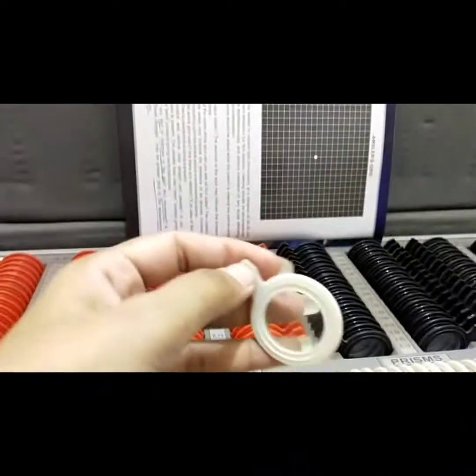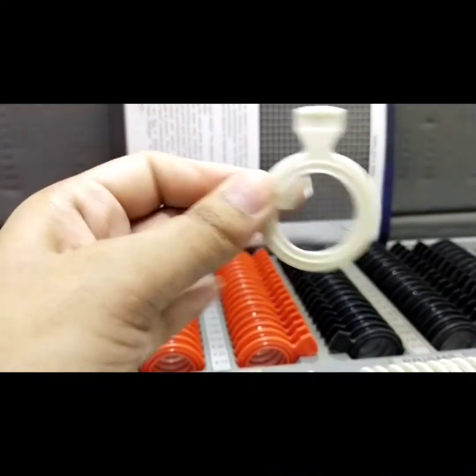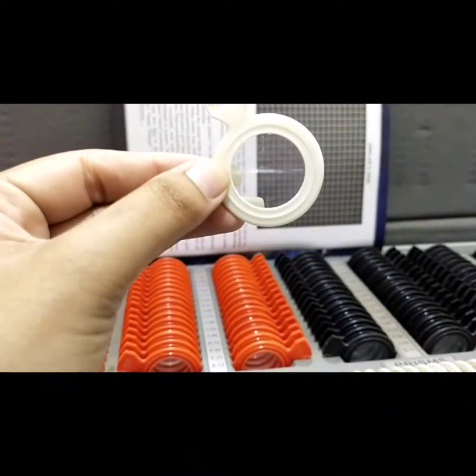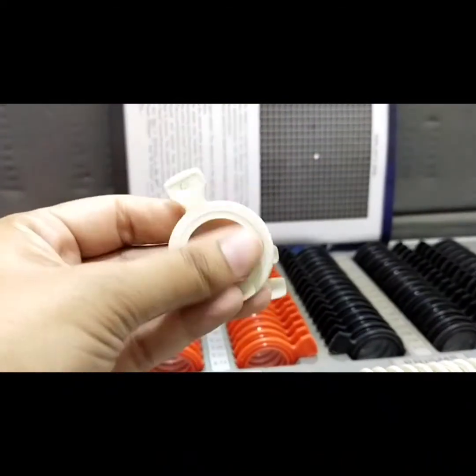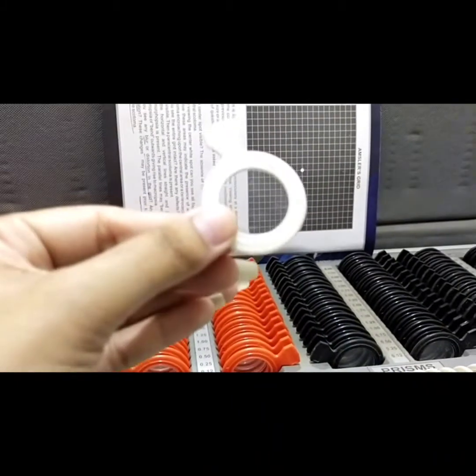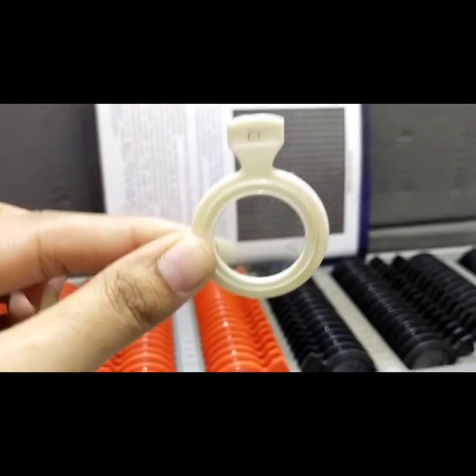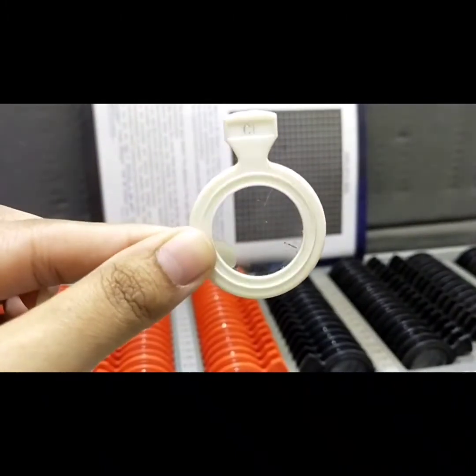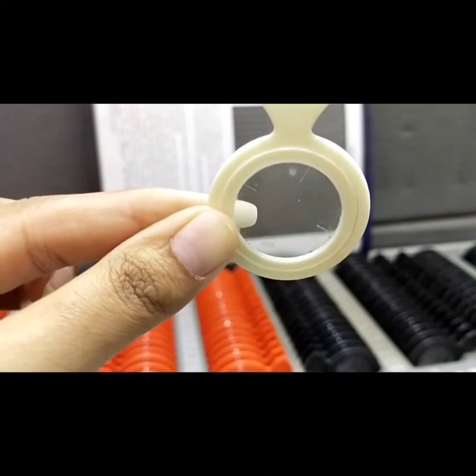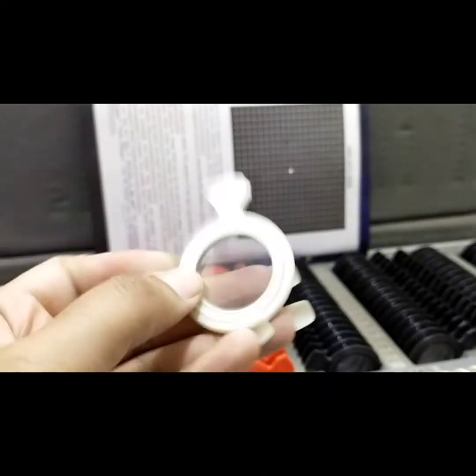Next is the centration lens (CL). This lens has four lines engraved on it and is also available in the form of a pair, though here only one is shown. It is placed in the trial frame to determine the IPD — inter-pupillary distance — of the patient.